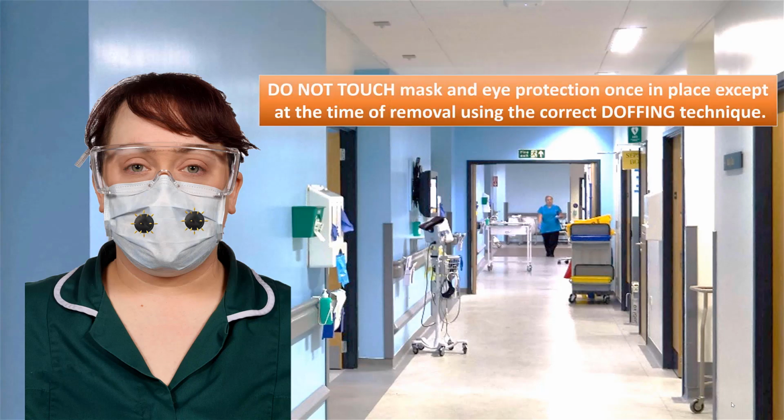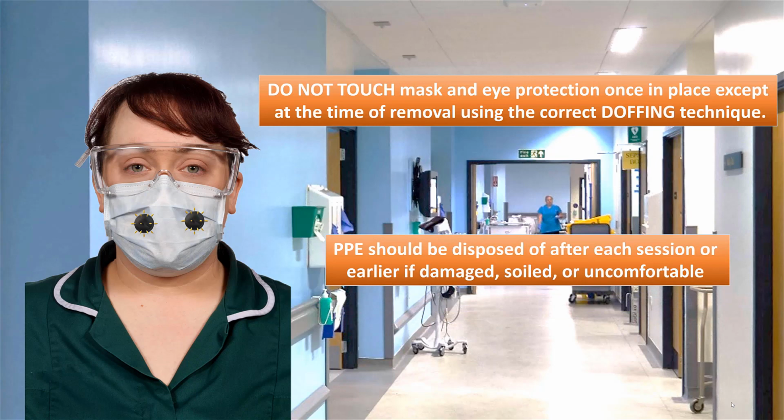It is of paramount importance that the mask and eye protection after placement are only touched at the time of removal using the correct doffing technique. PPE should be disposed of after each session or earlier if damaged, soiled or uncomfortable.